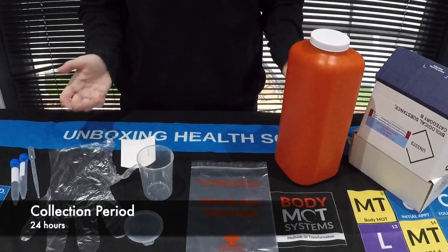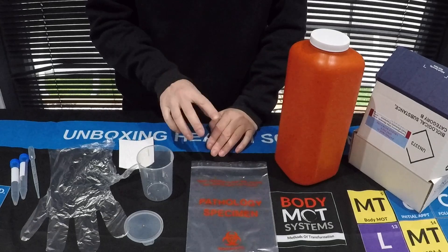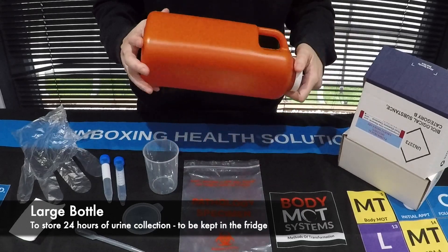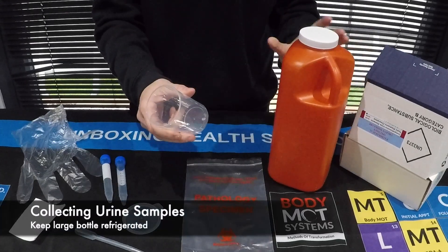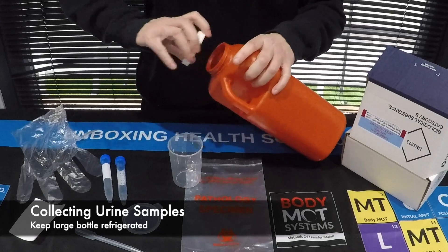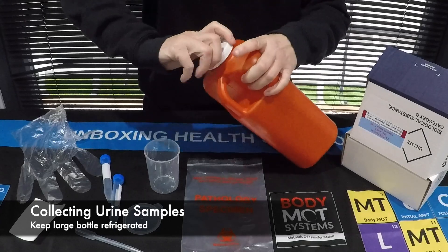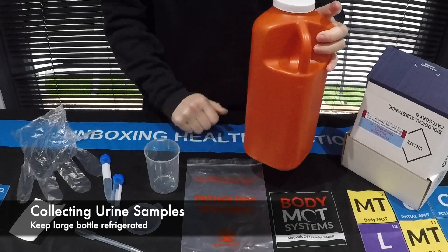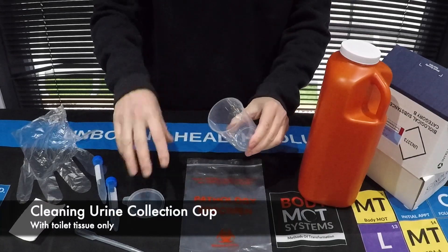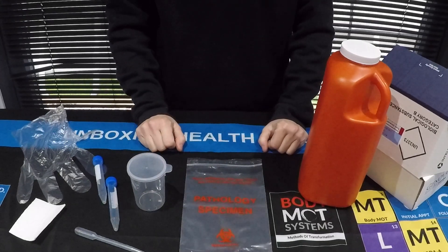So how do we use this kit when it comes to collecting 24 hours of urine? Number one, make sure you don't collect your first urine sample of the day — it needs to be number two. So the first thing we've got is your urine sample collection bottle. Let's say 10am was my second wee of the day. I collect my wee, open the cap, and pour it in. Immediately put on the cap and pop this in the refrigerator. Do not rinse with water, do not clean. You can wipe with a paper towel, then pop the lid back on. Leave it by the area where you're going to take your next urine sample.